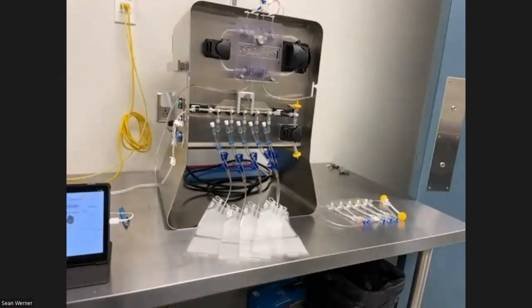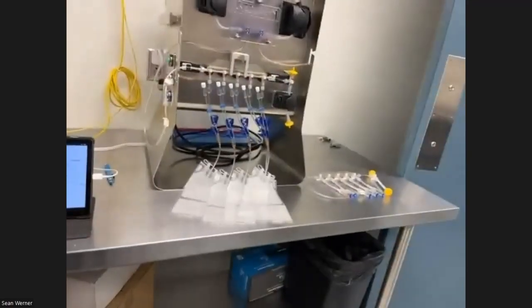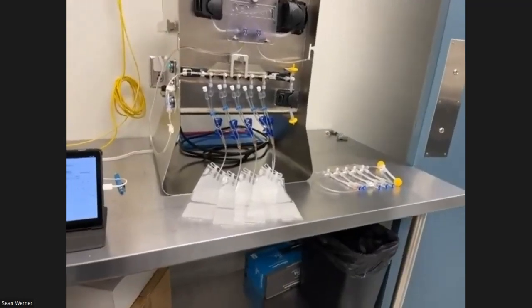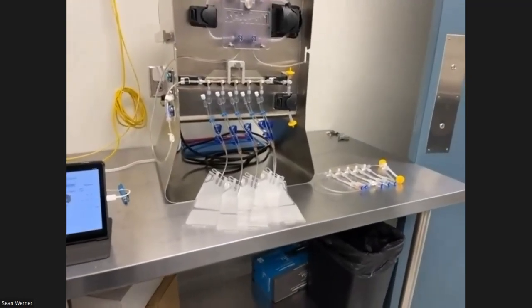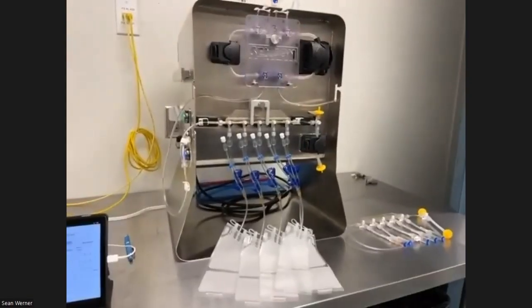You have the 5 ml cell seal vials that have the long tubing on them? Not yet. That product, we're still going through the final validation on it. So we've got a little bit more testing going on with that product, and that will be a downstream process.